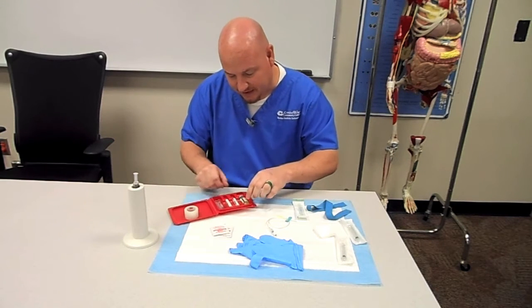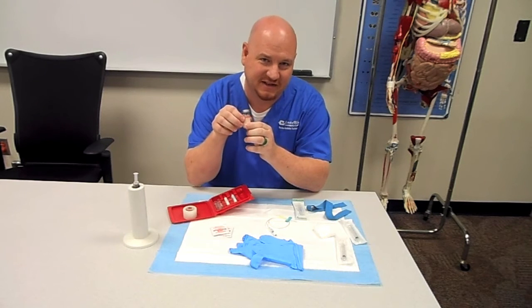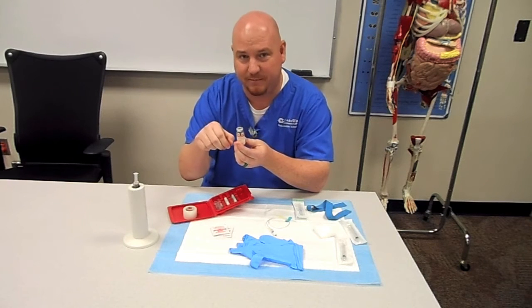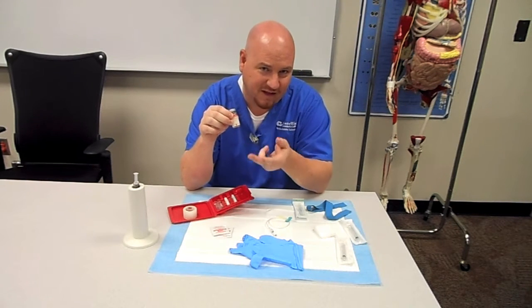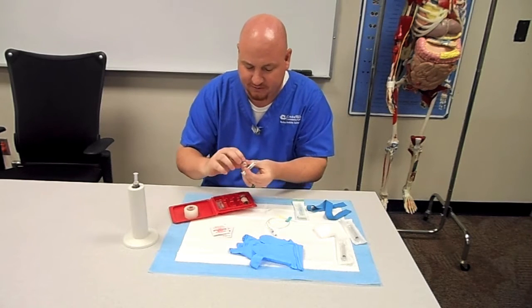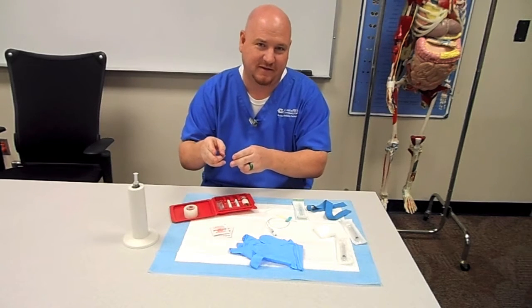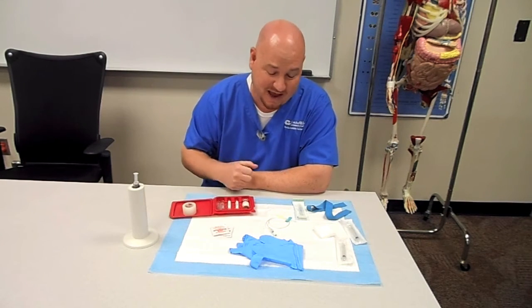The kit includes various parts. The first part is this reaction vial. This is where you're actually going to put the blood in first. It has stannous chloride and tin chloride in there, and those are actually going to diffuse into the red blood cells and then be the molecule that holds the technetium in the red blood cell. There's going to be more stannous chloride in here than we're going to have blood cells, and we don't want the technetium to tag to anything that's not a red blood cell. So we have two other syringes — syringe 1 and syringe 2 — which have different chemicals that are going to react with any stannous chloride not picked up in the blood cell. They can't diffuse into the blood cell, so they're only going to be interacting with the extra stannous chloride to prevent any technetium from tagging onto that.